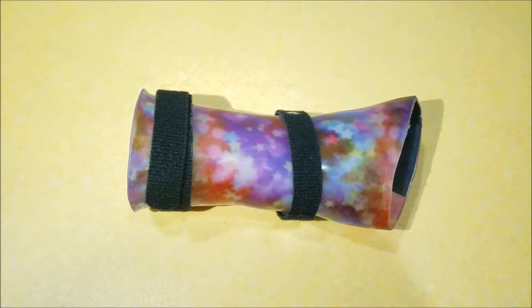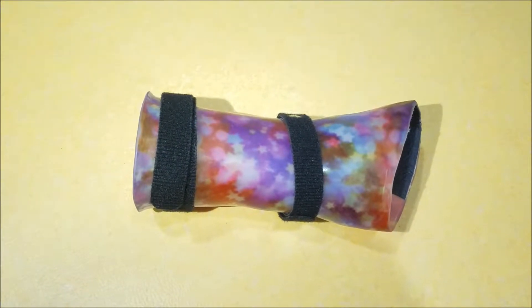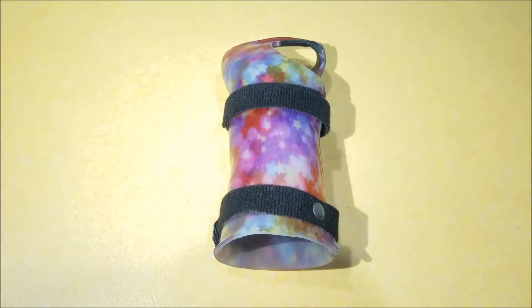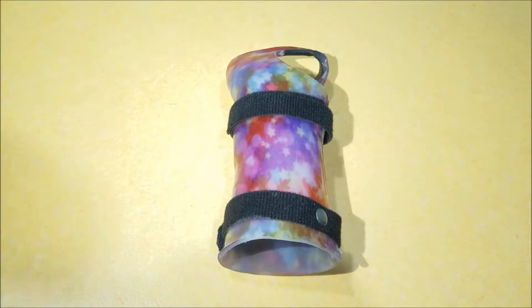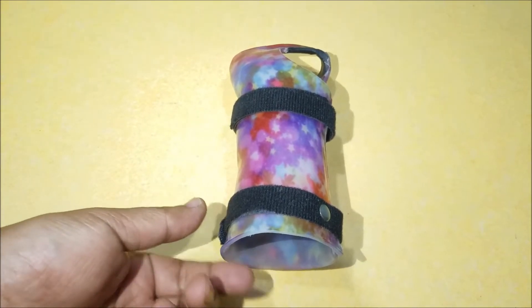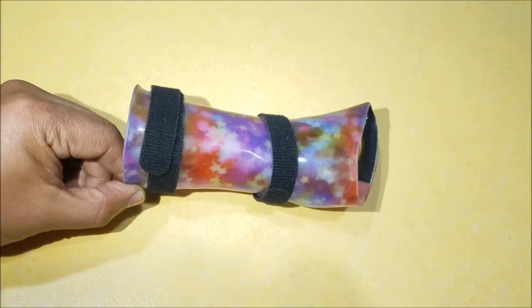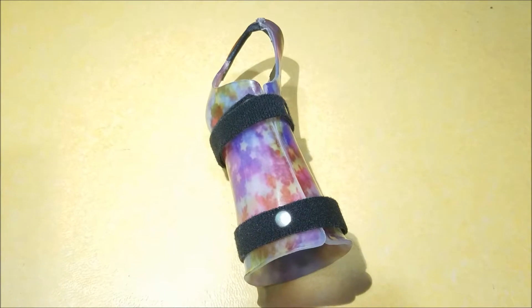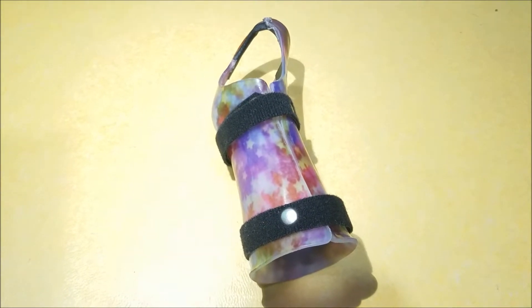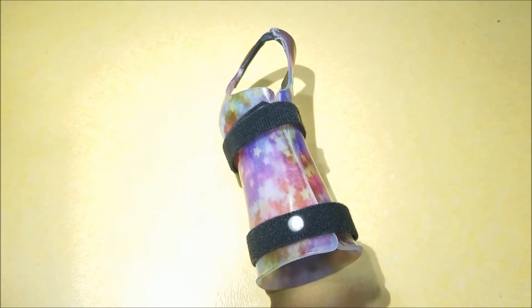The objective and indication of this orthosis is to provide greater wrist stability. It is also used as an evaluation tool before wrist fusion to determine the optimal wrist position and the impact of fusion on hand function. The other objective is to immobilize and stabilize a fracture of the radius or base of the metacarpal bone.